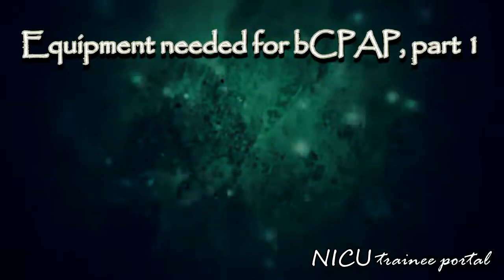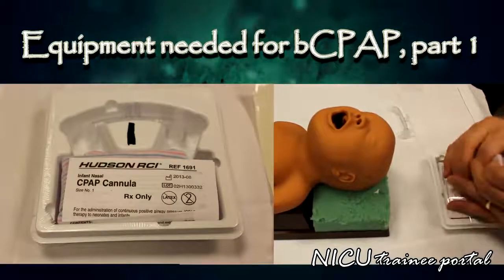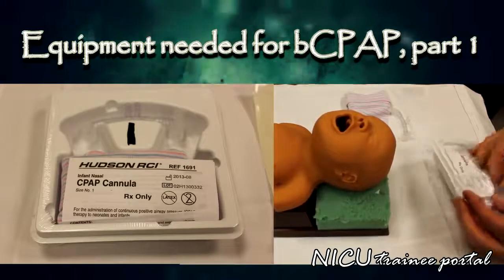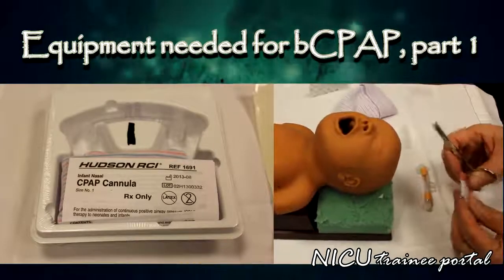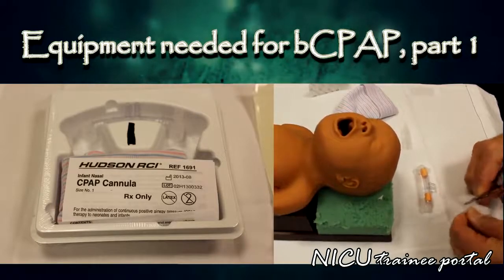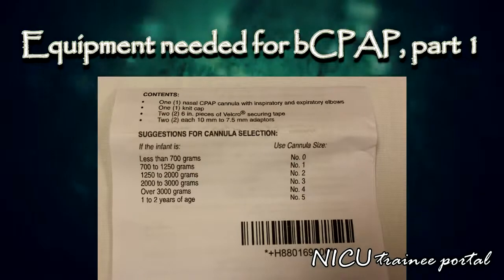You will need the following pieces of equipment: an infant nasal CPAP cannula kit. This contains nasal cannulae with connectors and adapters, a CPAP knitted head cap, and Velcro, which is used to make attachment circles, as well as a moustache for the upper lip. The weight of your patient will determine the initial cannula size used.